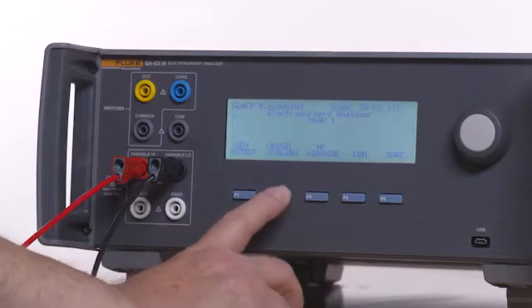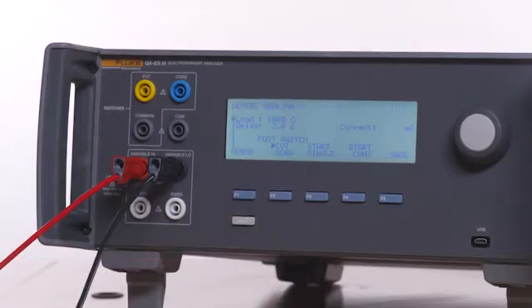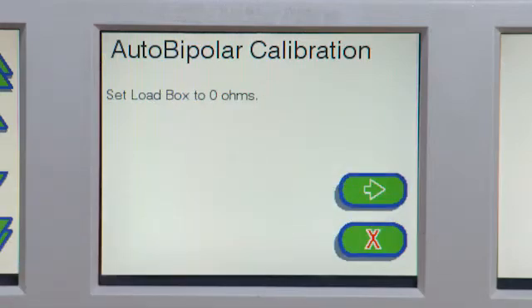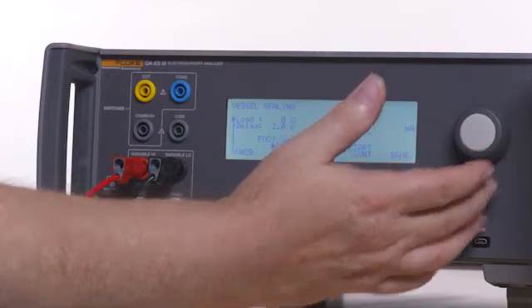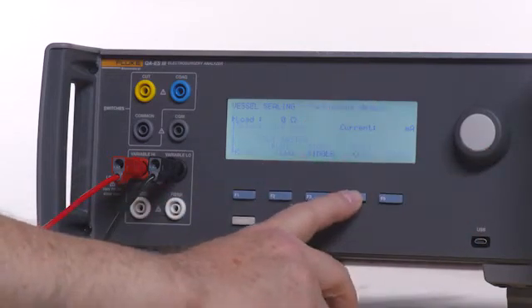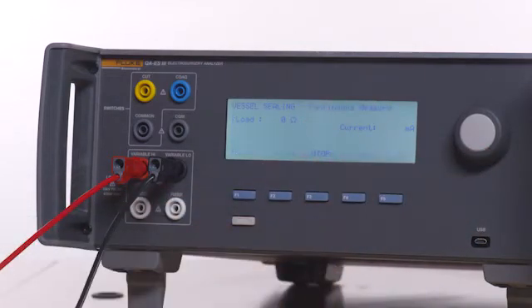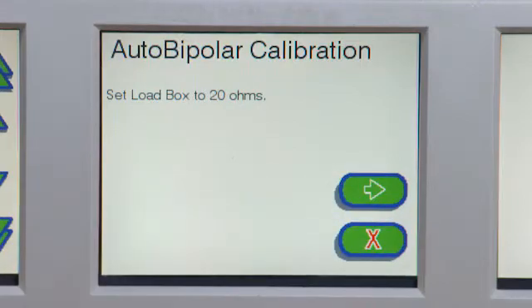Press the Back button and then F2 for vessel sealing. Follow the on-screen instructions on the Force Triad to change the load on the QAES-3. On the QAES-3, press F4 for start continuous, then select Next on the Force Triad.